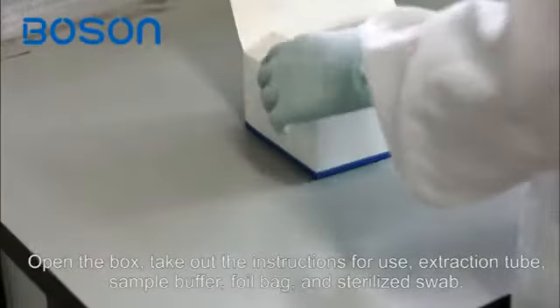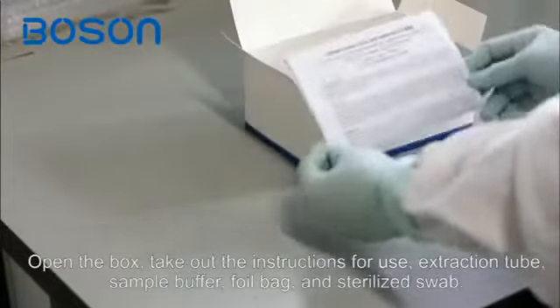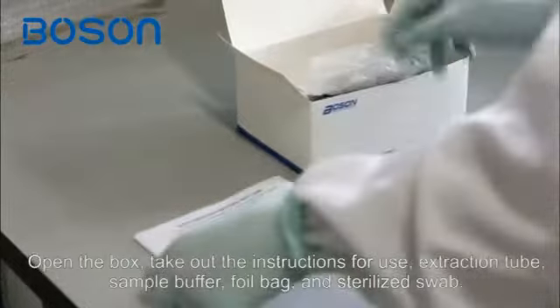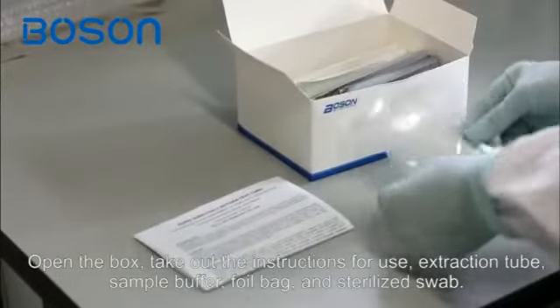Open the box, take out the instructions for use, extraction tube, sample buffer, foil bag, and sterilized swab.